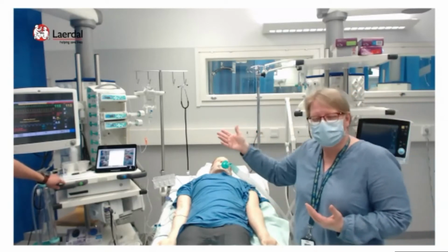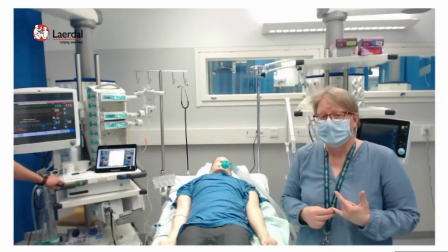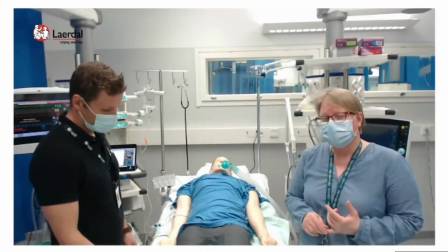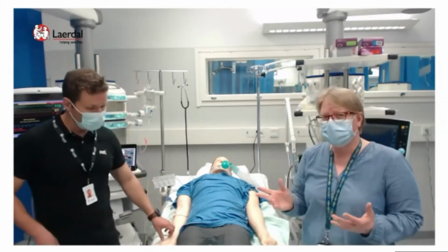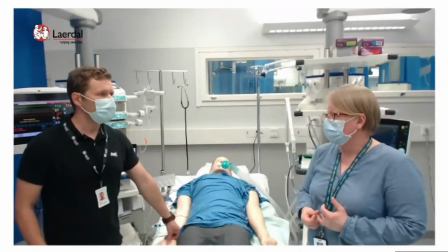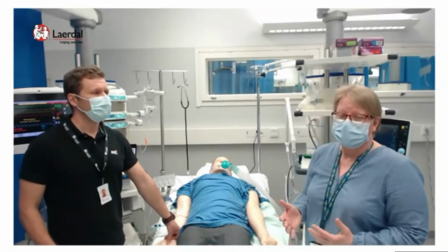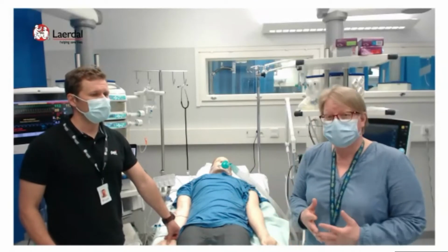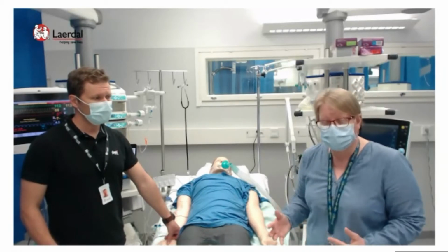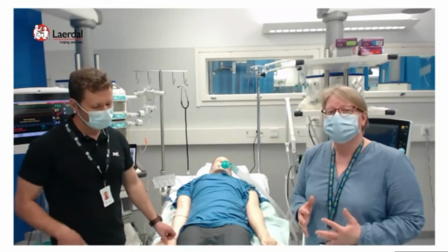It doesn't look like the normal monitor, but we have also tried the Laerdal solution called Vital Bridge, and it has been working very well in our cardiac care unit. In that you can put a real monitor with simulated parameters, and that works quite nicely and helps the personnel get the feeling of a real situation during the simulation.